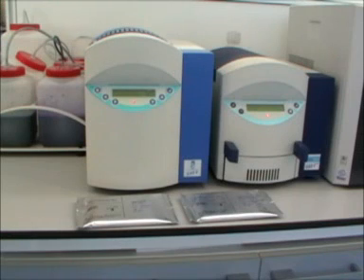You can see their SAS 1 Plus automated electrophoresis unit, the smaller unit on the right, coupled with the SAS 2 stain and destain unit, the larger unit in the middle. You can see the stain and destain reservoirs on the left.